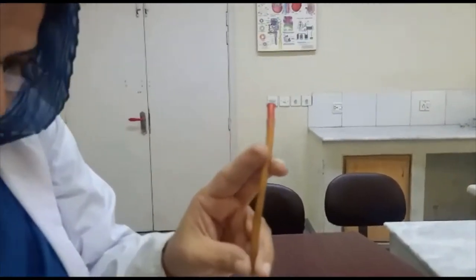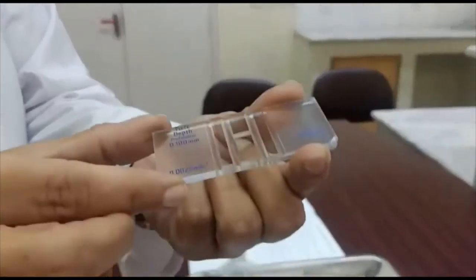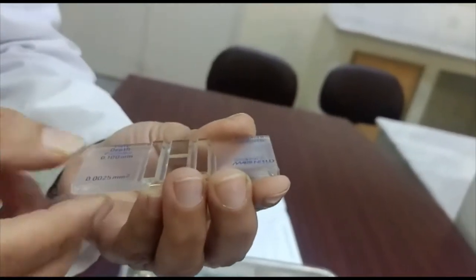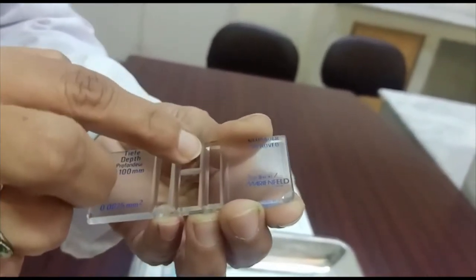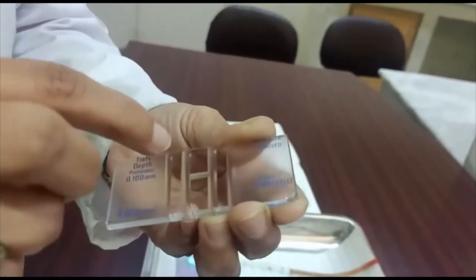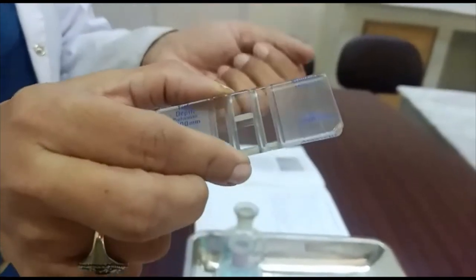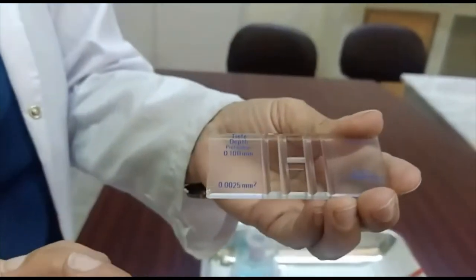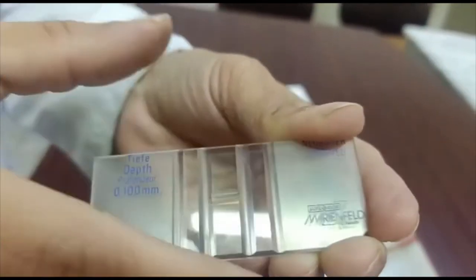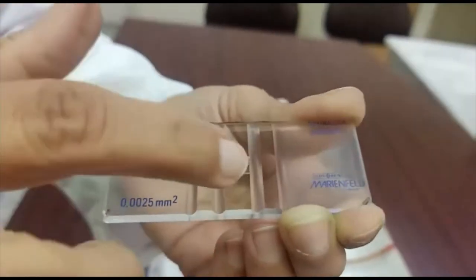The next part of the hemocytometer is the Neubauer chamber. It is a thick glass slide having a central platform which is divided into two parts by the horizontal part of an H-shaped groove. Two grooves are on the lateral sides of the central platform. This central platform is called the Neubauer chamber, and it is over this platform that we count red blood cells.